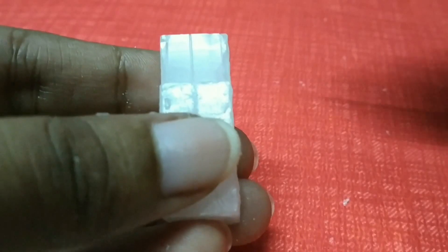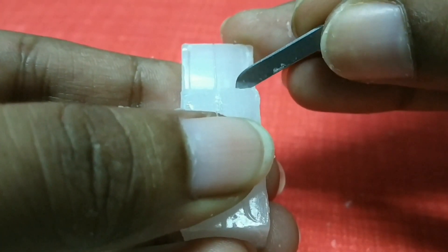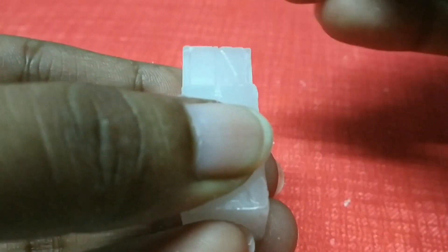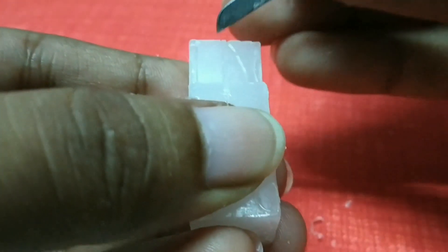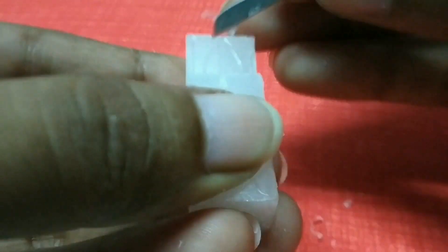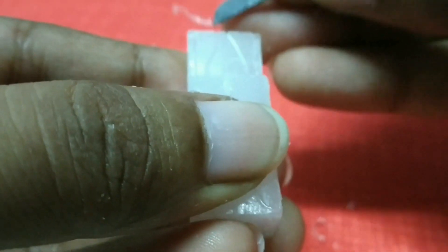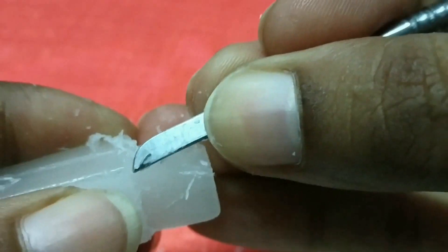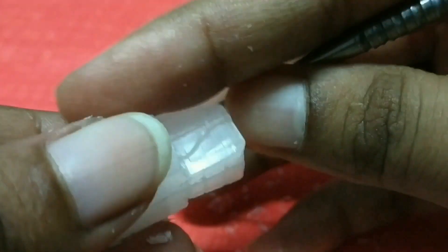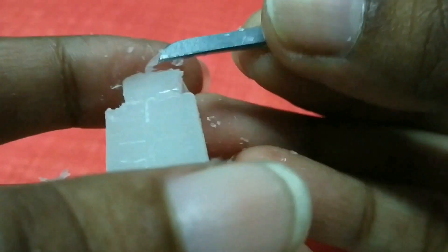Now from the labial aspect, draw the convexity in arc shape, touching the midline. And an S-shape convexity and concavity like this. Now remove the excess wax part and carve it to get a smooth labial surface.